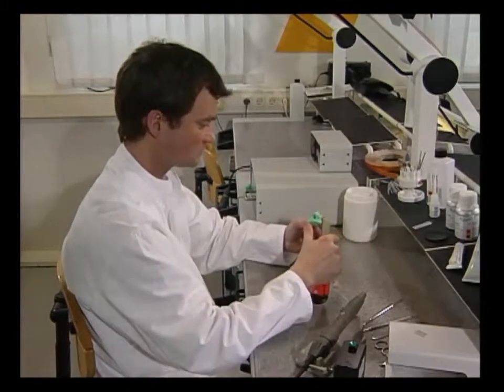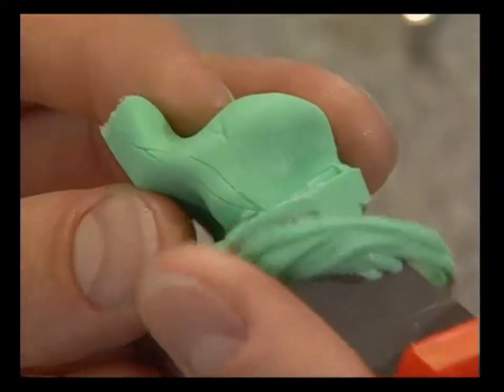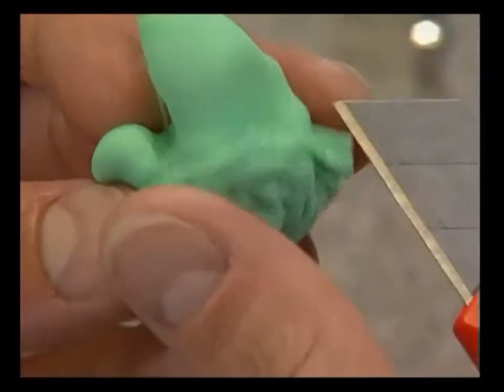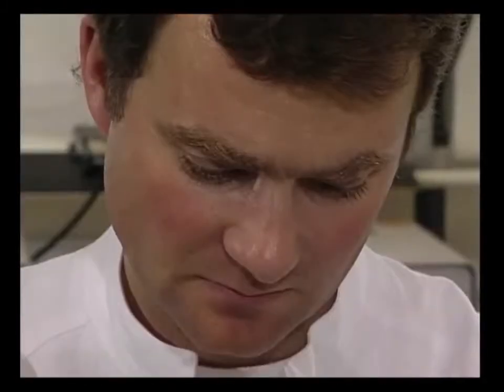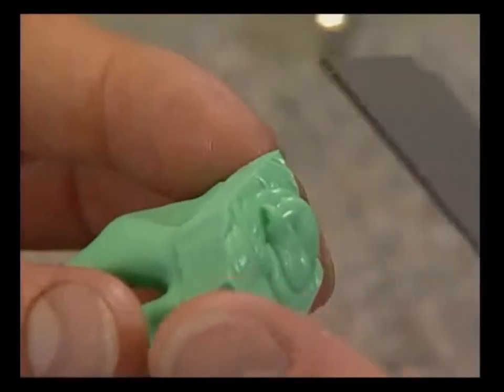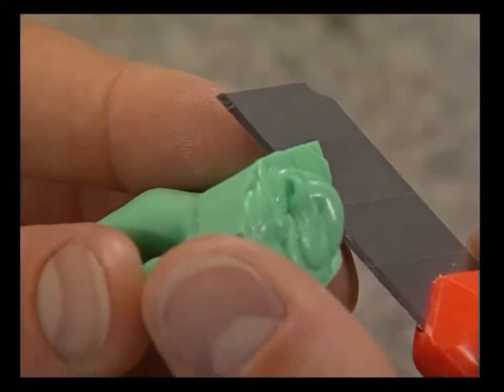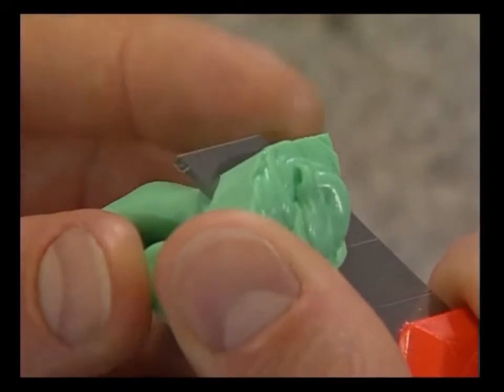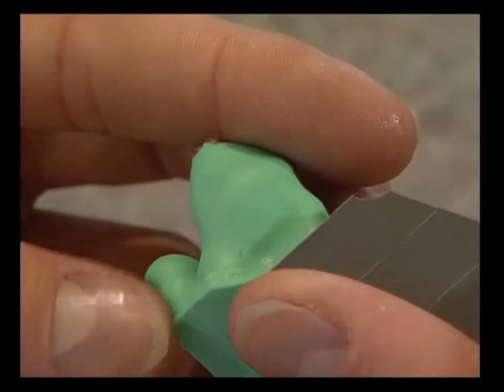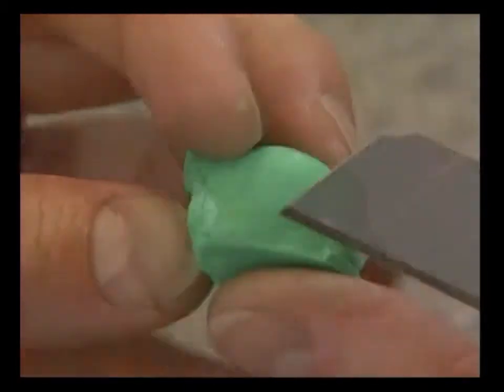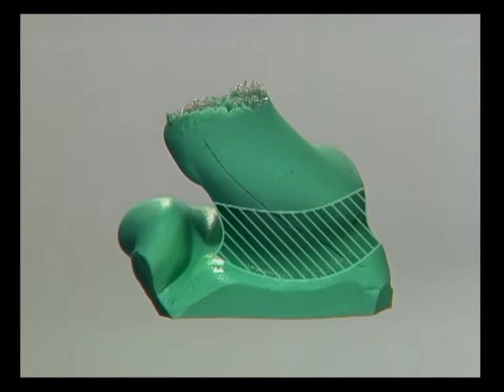A universal knife is used to cut away the overhanging impression material which forms the sides above the concha at a right angle. The impression is cut flat on the outside with the universal knife. The seal zone must not be damaged.